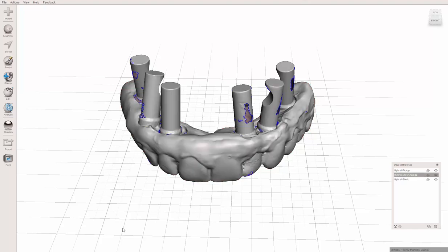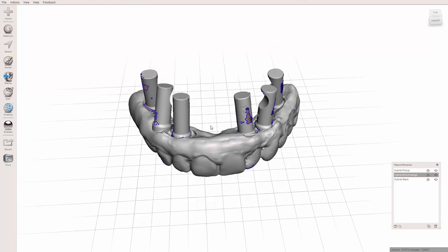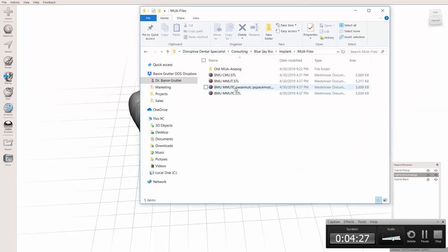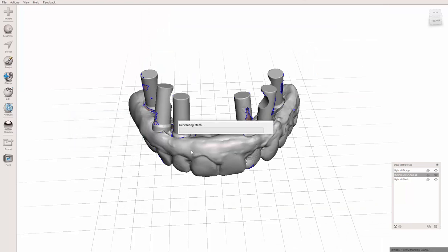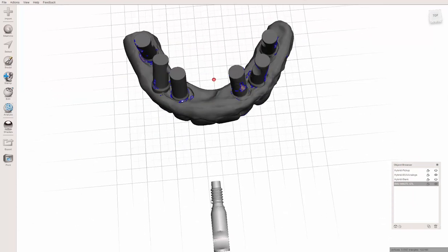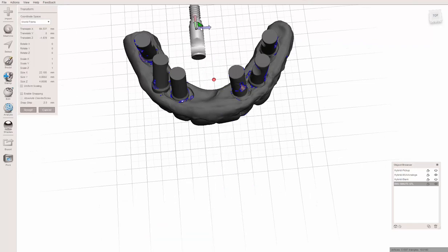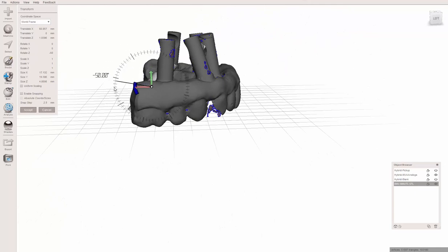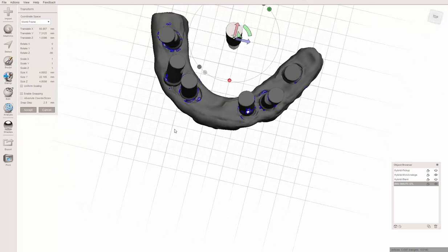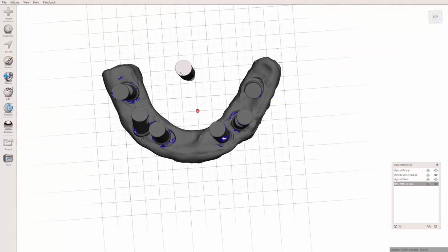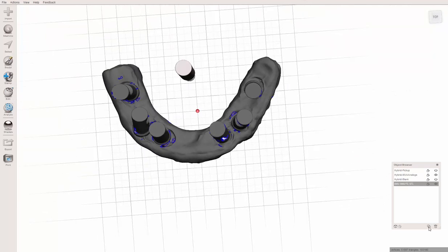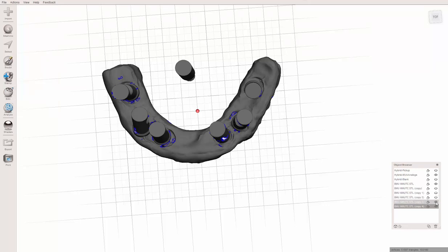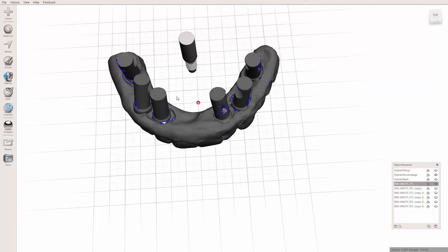First things first, I'm going to bring in some analog STLs. I'm going to make my life easier - hit T to transform, slide this forward, and rotate it up 90 degrees. This isn't going to be perfect, I'm just making the rest of the process easier by getting it more visible. Before I do anything else, I'm going to click duplicate until I have six of them because I know there's six total things I need to line up.